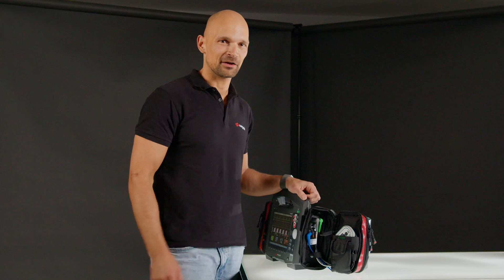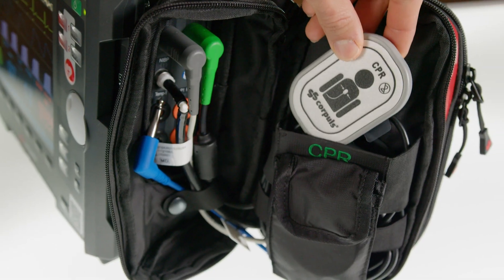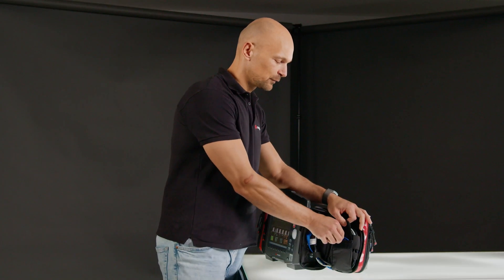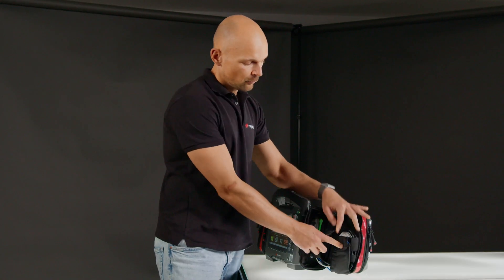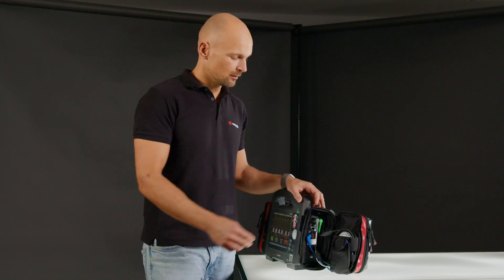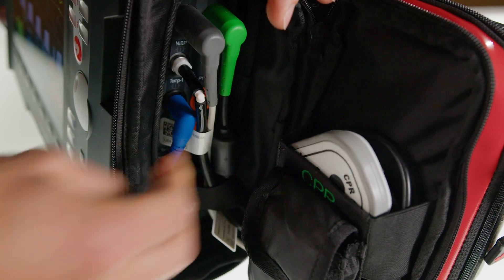When opening the inside right pocket, you will immediately recognize the prime CPR easy feedback sensor, and the temperature probe can be found in the pocket below. Since this would always measure the temperature of the inner pocket without patient contact, it is only plugged in when the temperature probe has been placed on the patient.